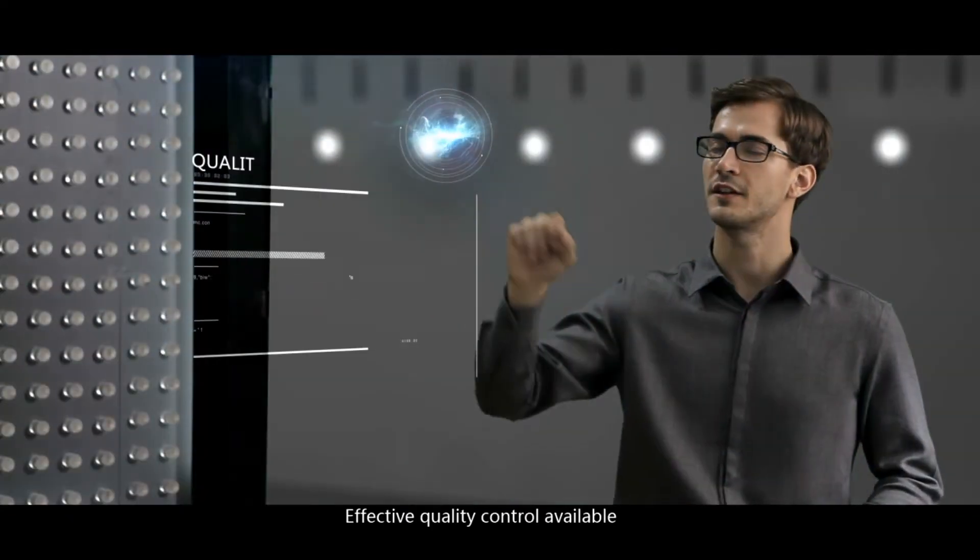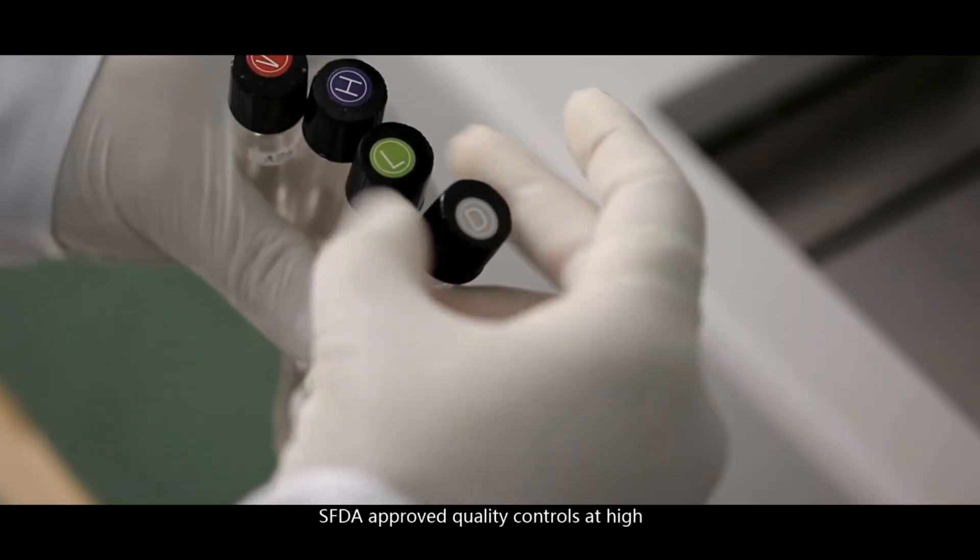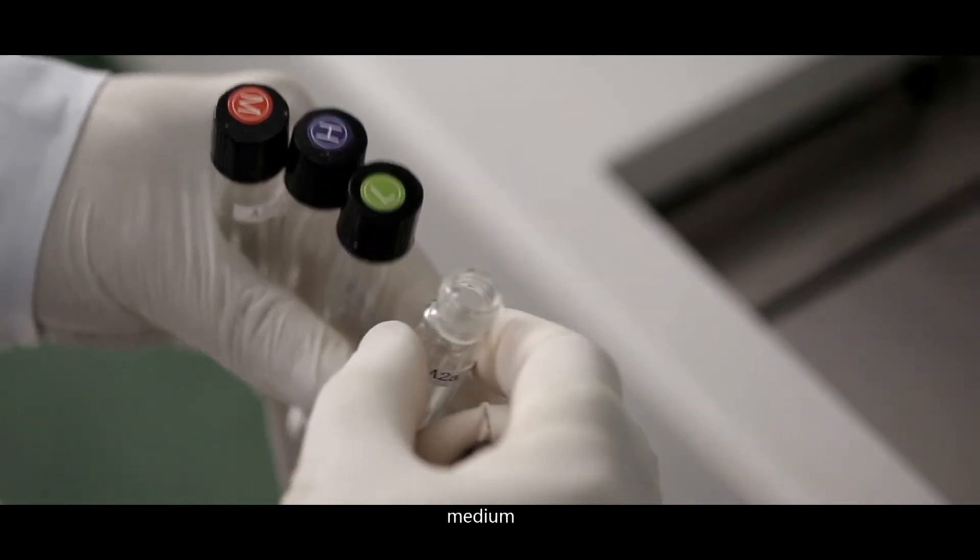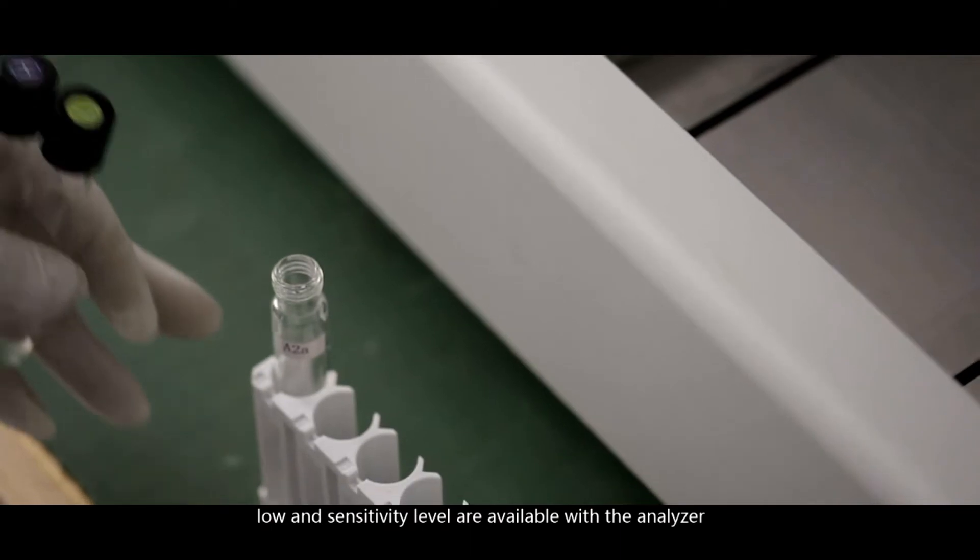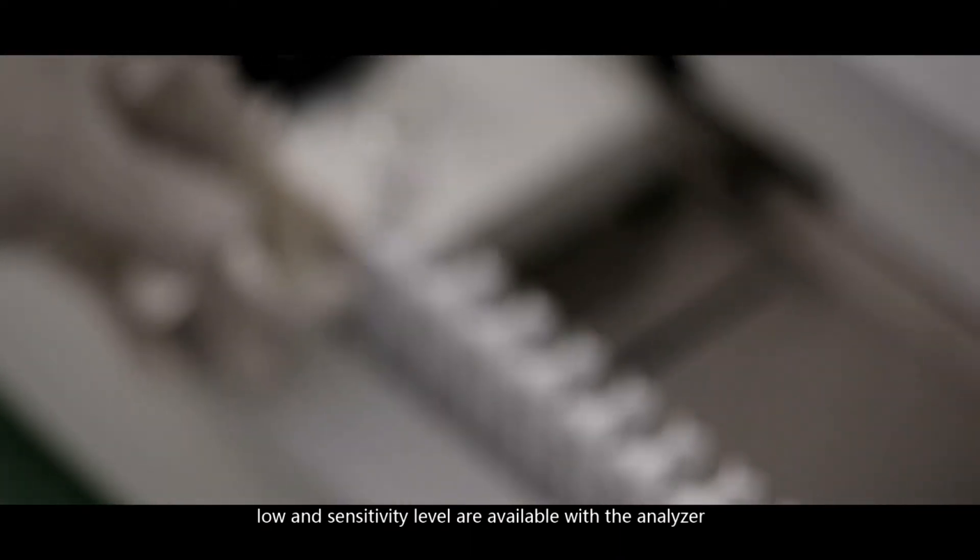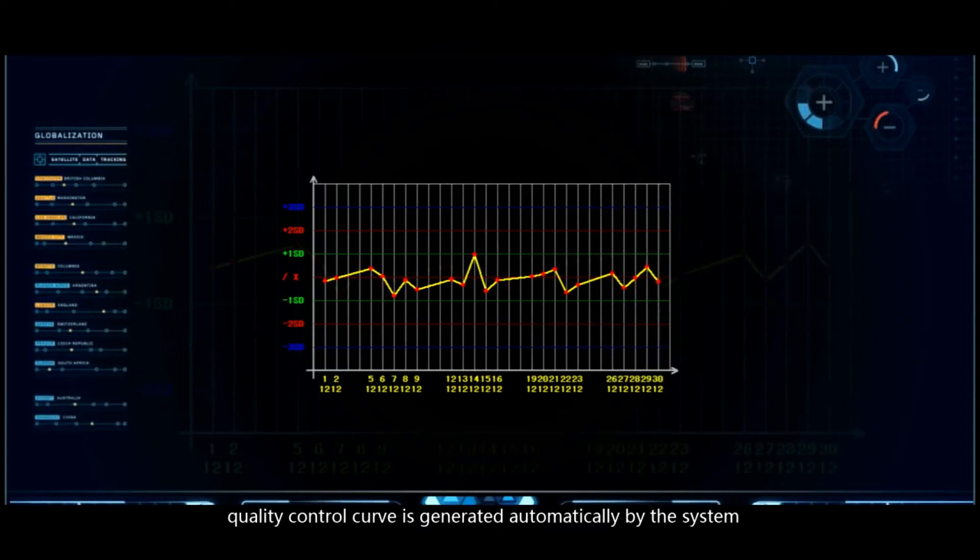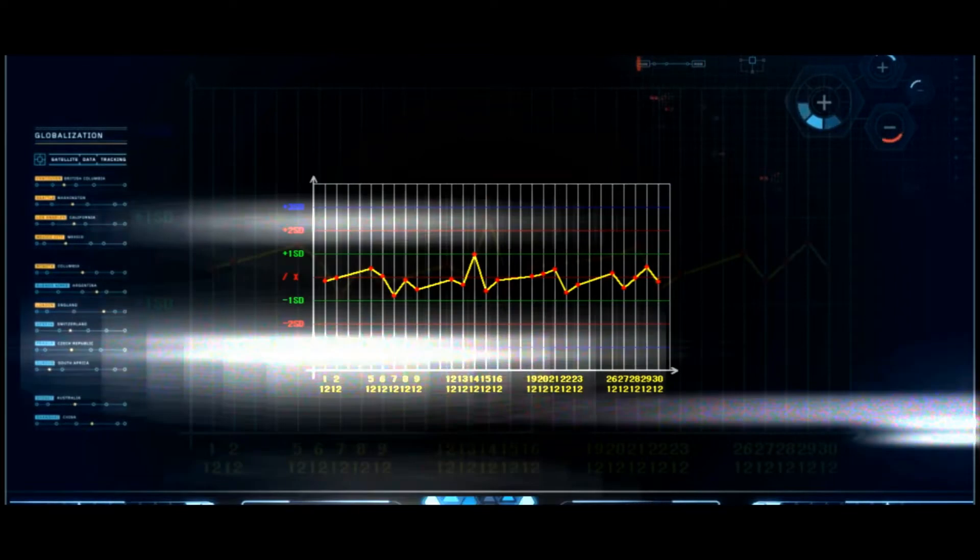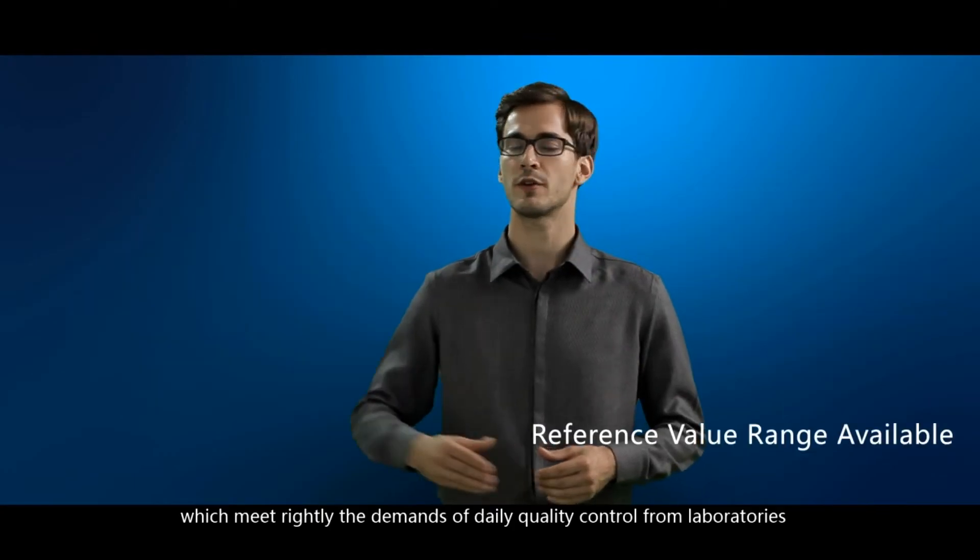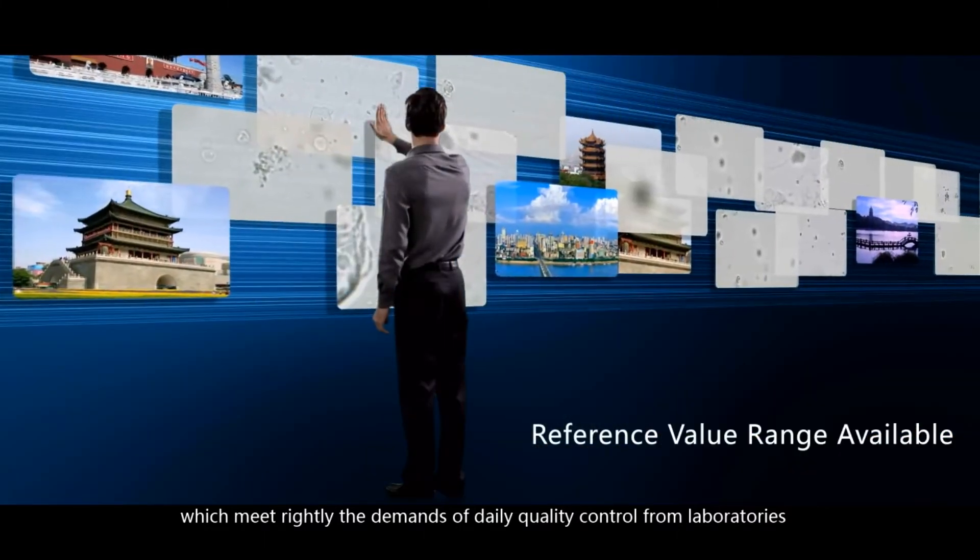Effective quality control available. SFDA-approved quality controls at high, medium, low, and sensitivity level are available with the analyzer. By using them, quality control curve is generated automatically by the system, which meets rightly the demands of daily quality control from laboratories.